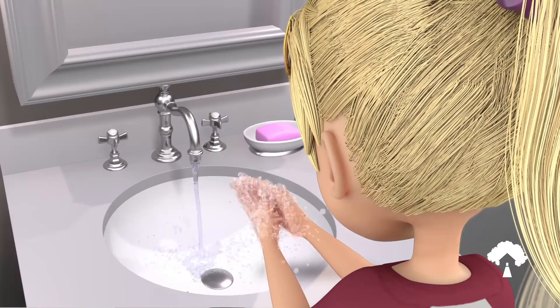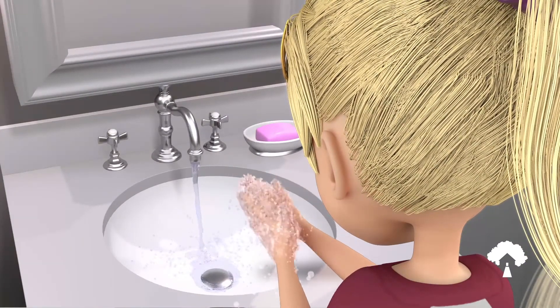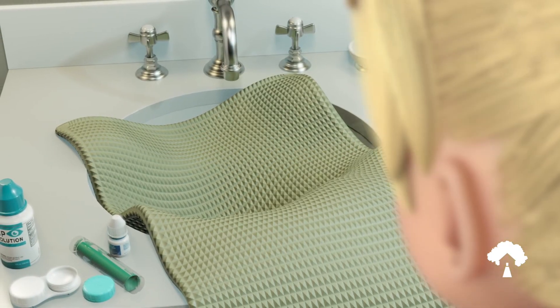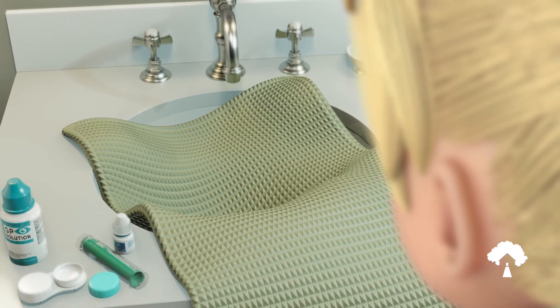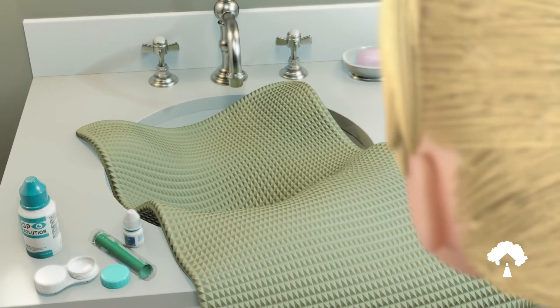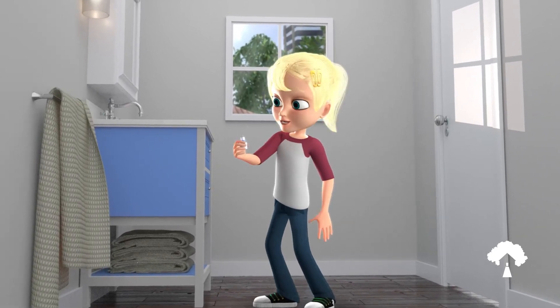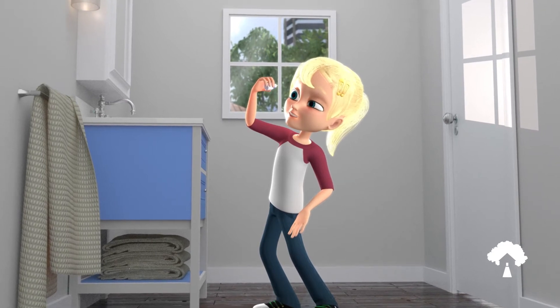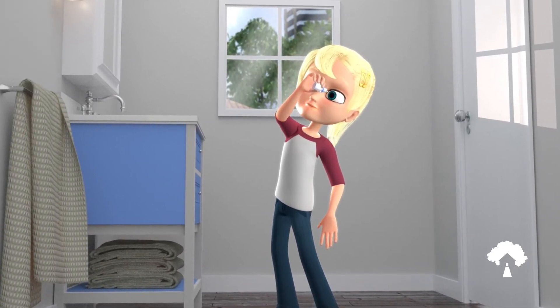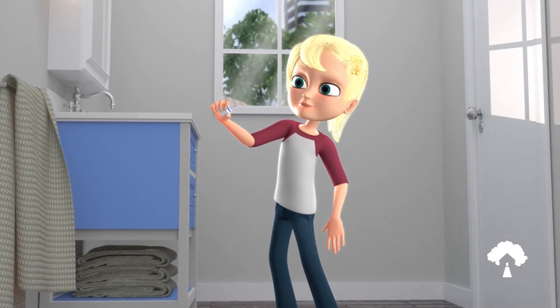Wash hands with soap and water, rinse hands thoroughly to eliminate all soap residue, and dry with a lint-free towel. If removing your lenses near a sink, be sure to cover the opening of the drain to prevent accidental loss if dropped. Prior to beginning the removal process, instill one drop of artificial tears into each eye. This will help to loosen up the lenses and make the removal process easier. Make sure the lenses are moving freely before attempting to remove them.